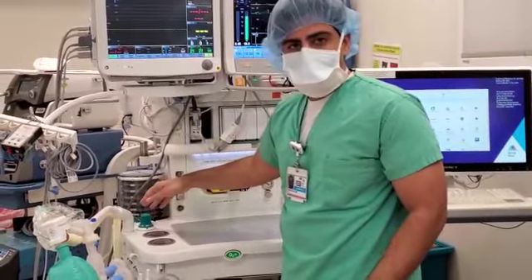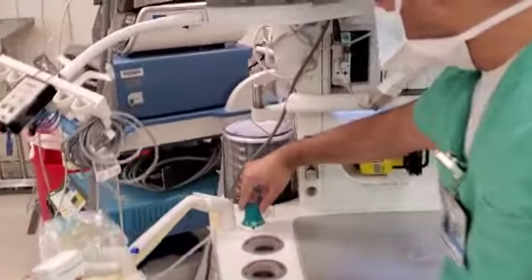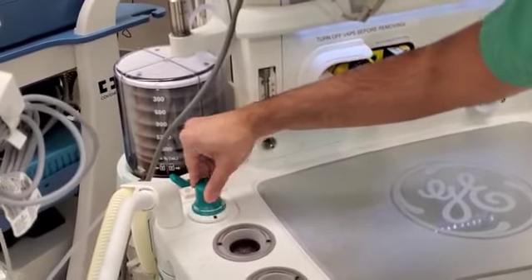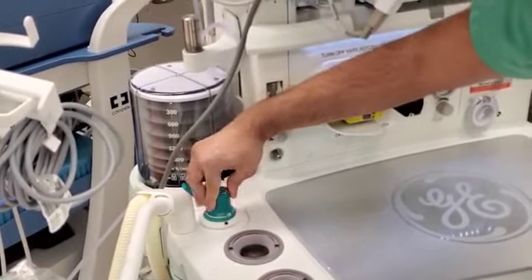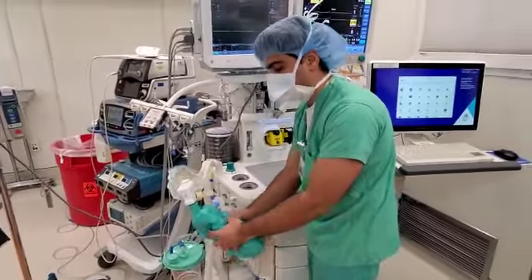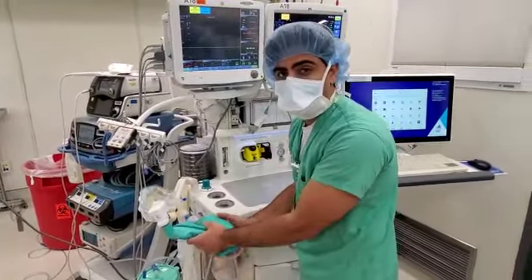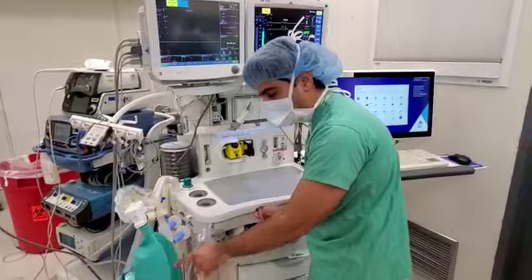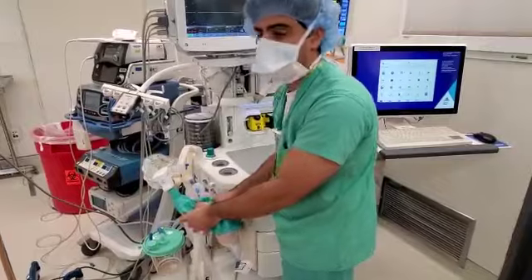If it's on manually ventilating a patient, when you flip that switch back to the bag mode, you can then turn this, called the APL valve. When you turn it, you're actually closing the valve, and over here are the different pressure set points, 20, 30, and then 70, and everything in between. When you do that, this fills up this reservoir bag, and you can then compress this to deliver a breath. If the bag stays deflated before the next breath, and you quickly need to ventilate someone to help bring their oxygen saturation back up, you can hold this flush button and it'll inflate this bag on its own so that you can then deliver a nice positive pressure breath again for the next breath.